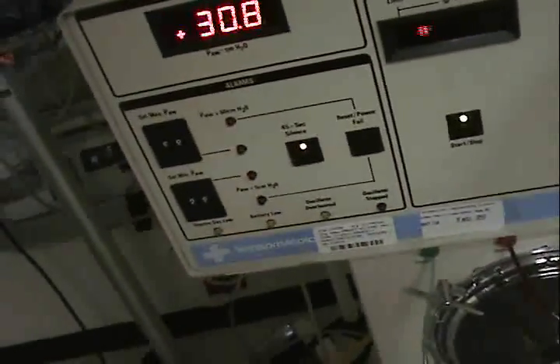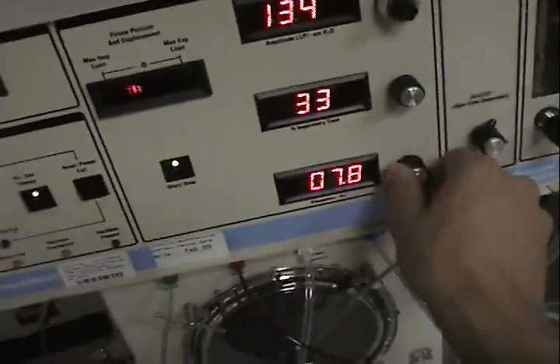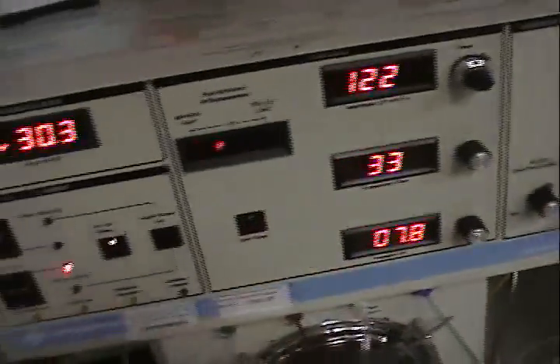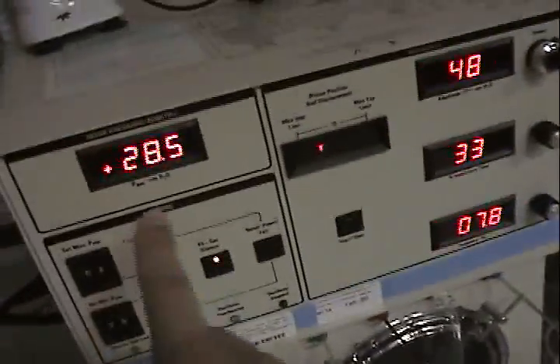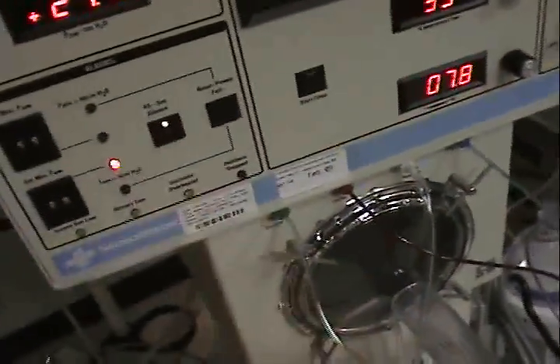It's a very simple step to calibrate — not very hard. Stop the piston. The mean airway pressure is still there. Start it again — and that's how you end it. That's how you calibrate the high-frequency oscillatory ventilator.